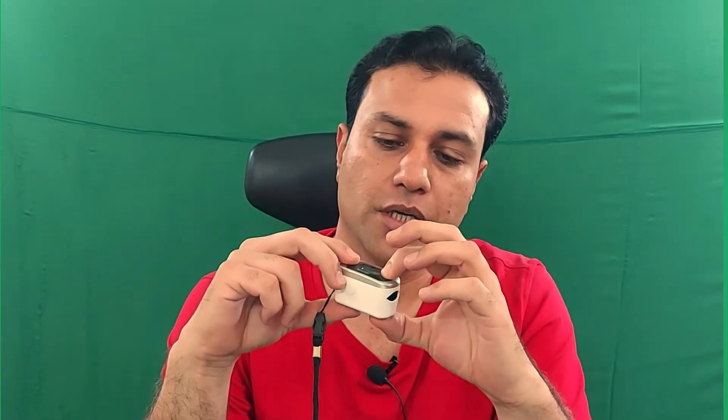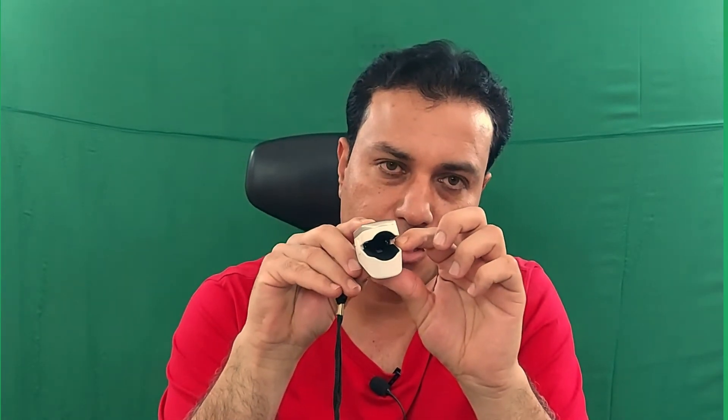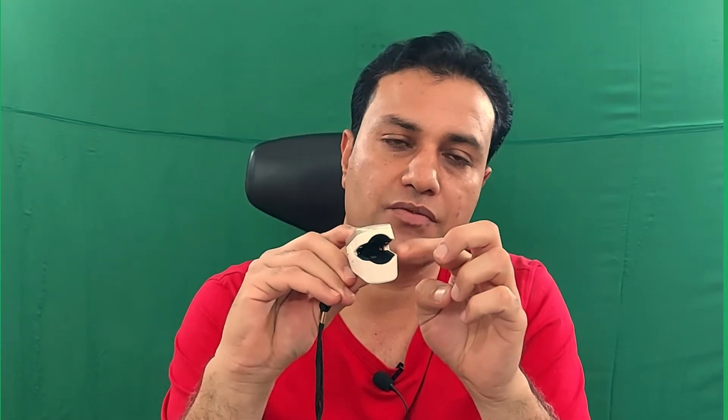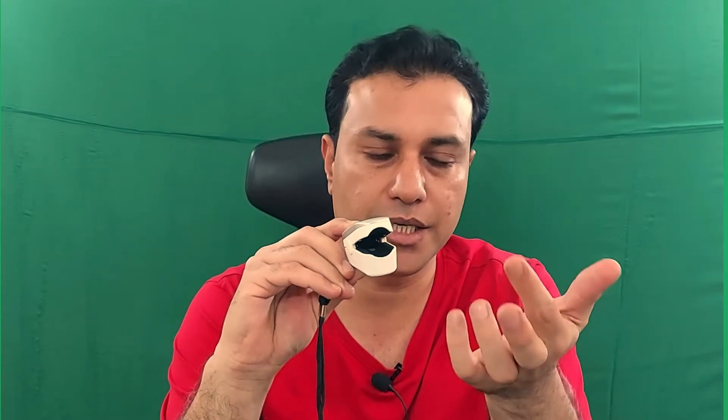Now let me explain the mechanism of this pulse oximeter. As you can see here, there are red light emitters on one side, and on the other side there is a receiver. When this infrared light passes through the tissue, it measures the level of oxygenated blood or hemoglobin and shows the result.